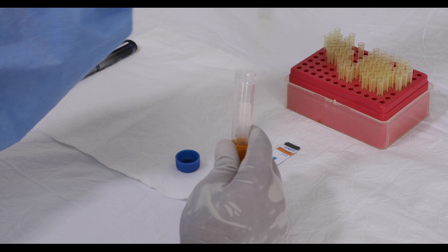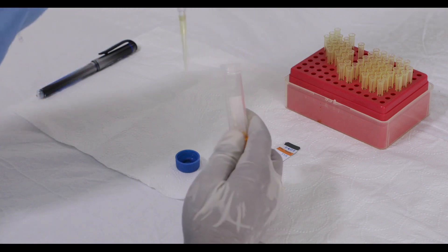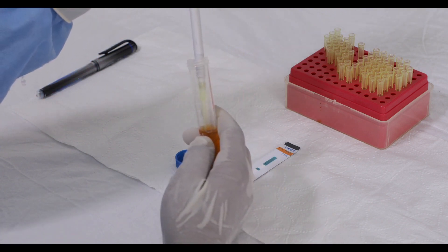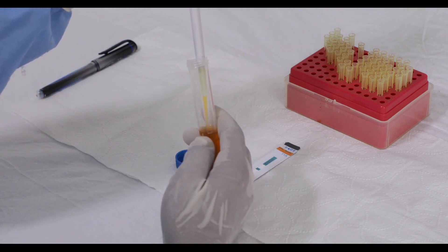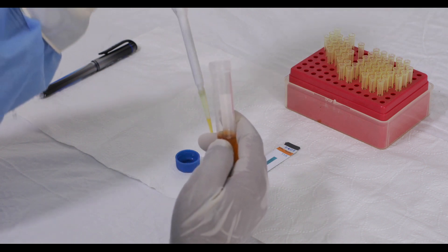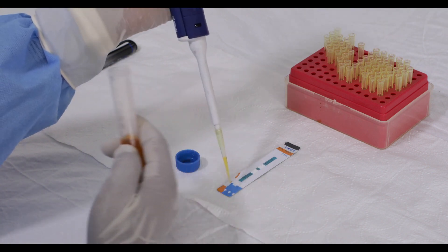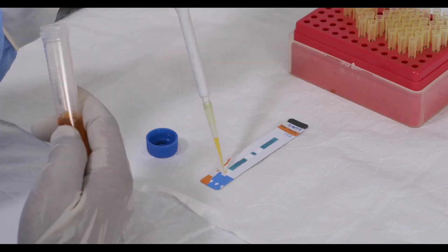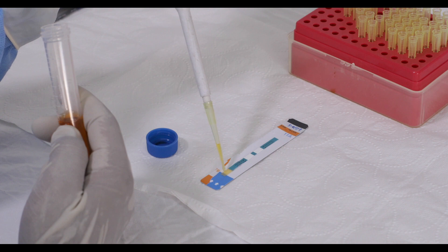Using the already calibrated pipette, apply 60 microliters of the sample, or 2 drops of urine, to the sample pad — a white pad marked by the arrow symbol.